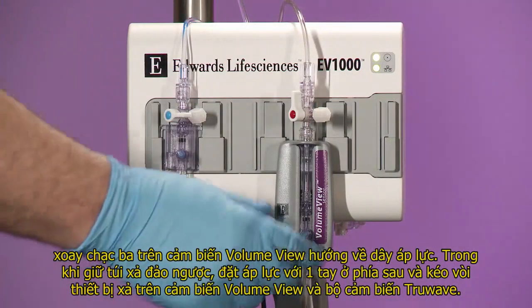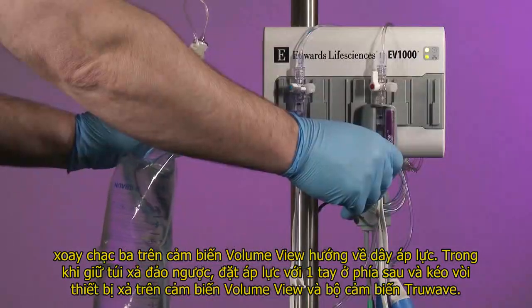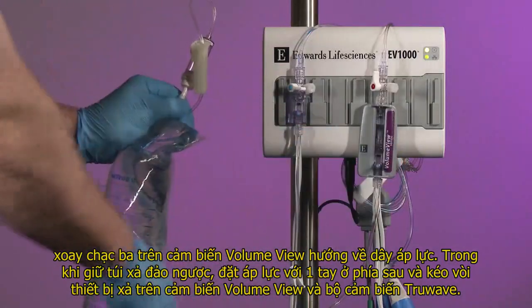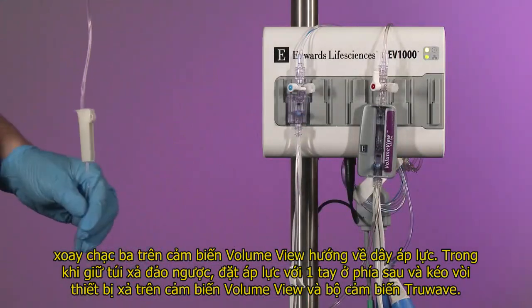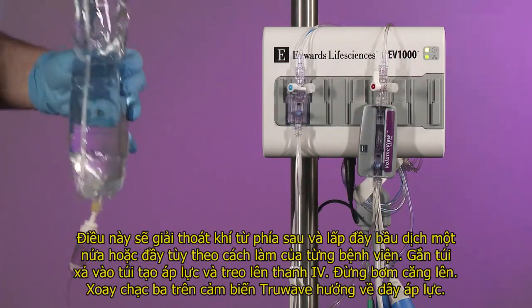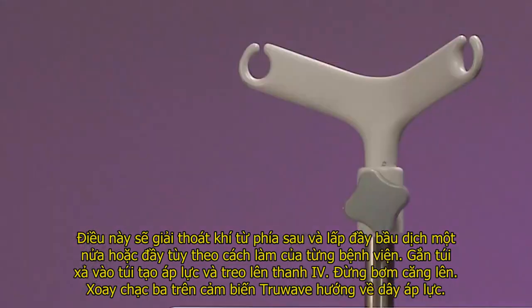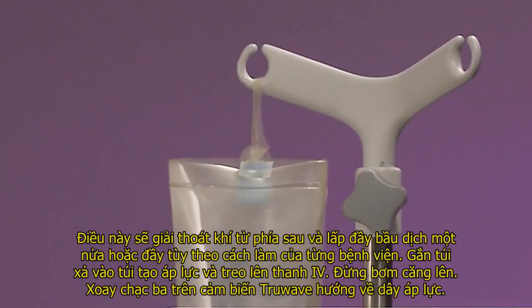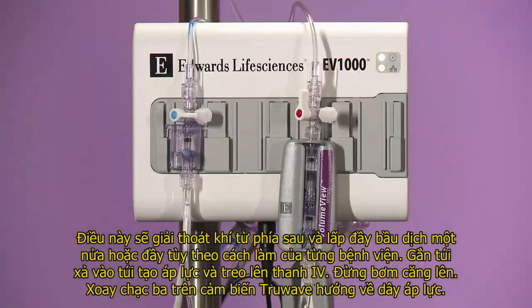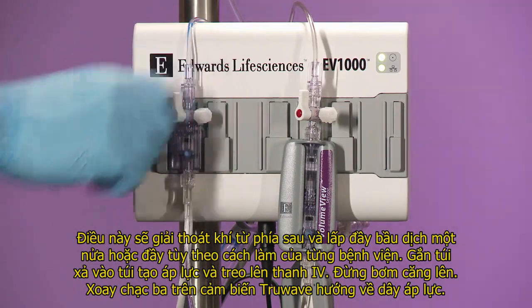While keeping the bag inverted, place pressure with one hand on the bag and pull the snap tab flush device on the VolumeView sensor and transducer. This will evacuate air from the bag and fill the drip chamber halfway or full, depending upon institutional preference. Insert flush bag into pressure infuser bag and hang on IV pole. Do not inflate. Turn the TrueWave CVC transducer stopcock toward the pressure tubing.